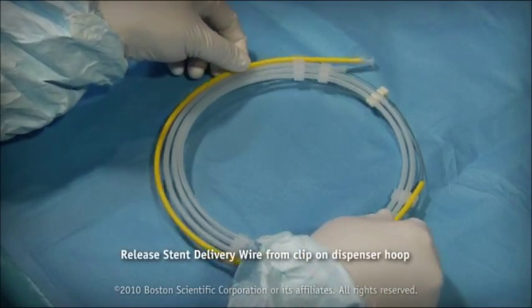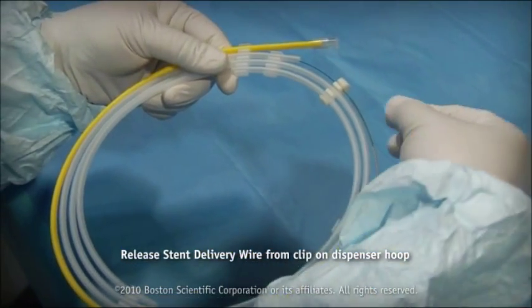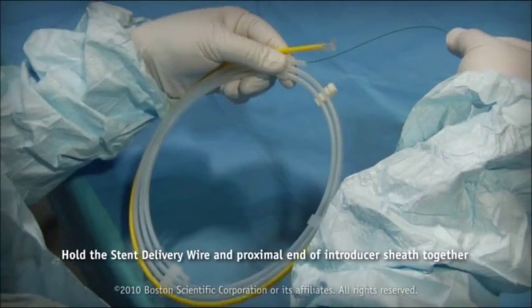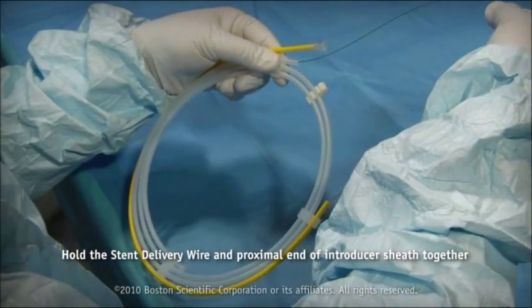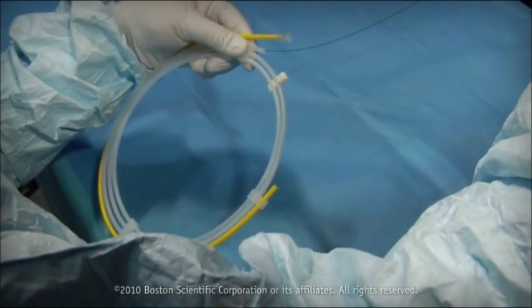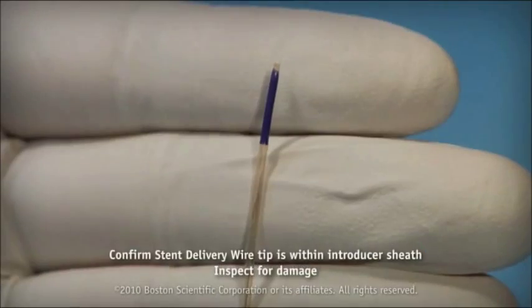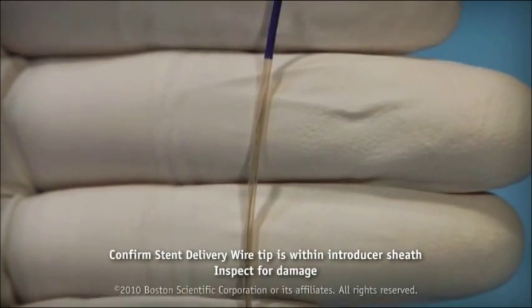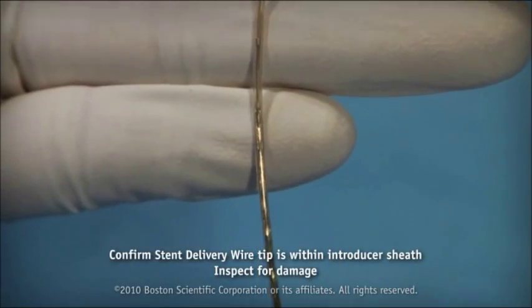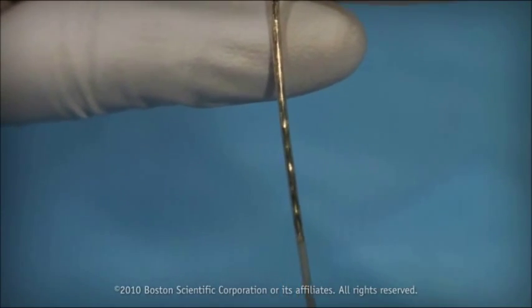Release the stent delivery wire from the clip on the dispenser hoop. Hold the stent delivery wire and proximal end of the introducer sheath together to prevent stent movement, then carefully remove the system from the dispenser hoop. Confirm the tip of the stent delivery wire is entirely within the introducer sheath, is not kinked, and the introducer sheath tip is not damaged.